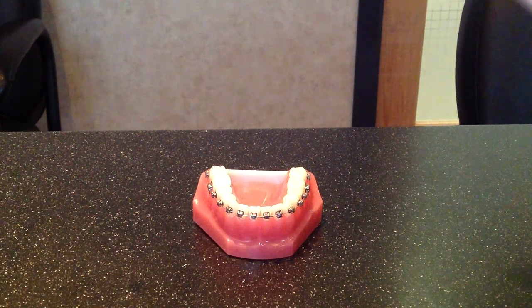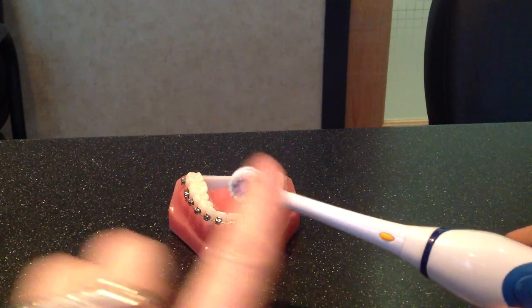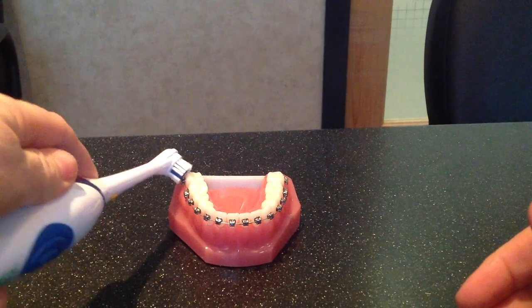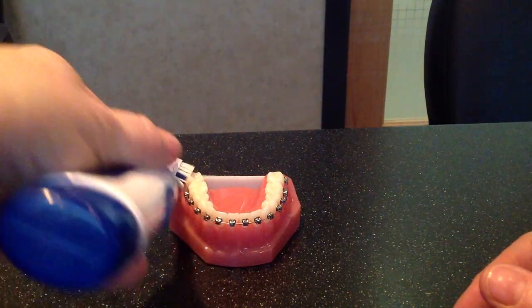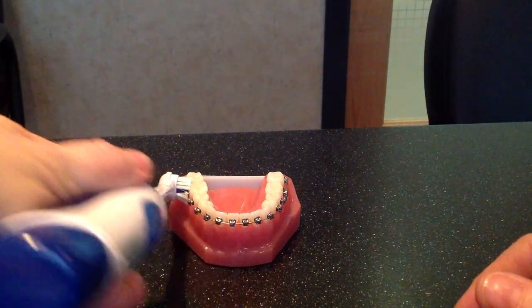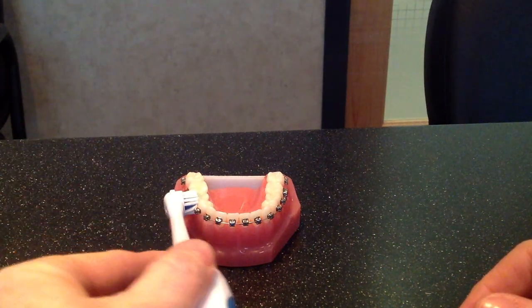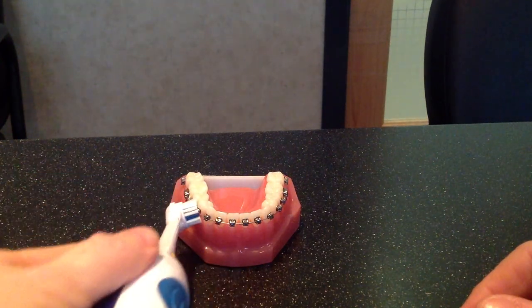You will also get a rotary brush from our office. The rotary brush is great because it allows you to put toothpaste on and brush the teeth and braces at the same time. You concentrate on one tooth at a time and make circular motions all the way along — three or four passes to each tooth. When I turn the rotary brush on you'll hear it's a little loud, but you can see the bristles moving.